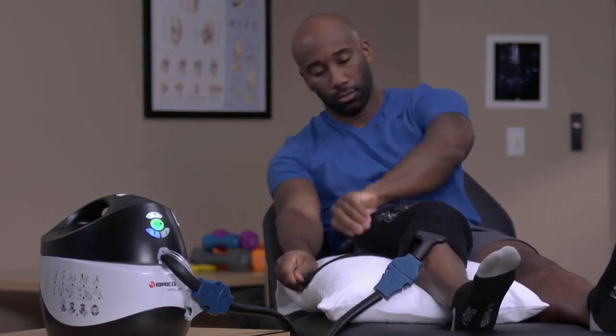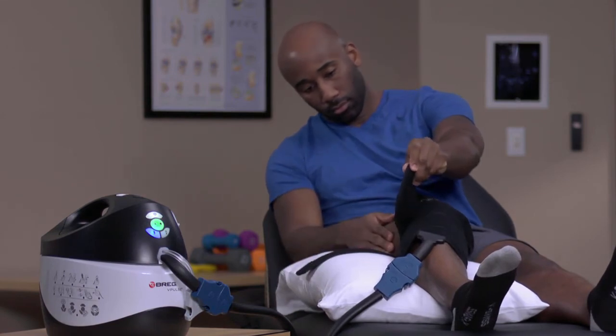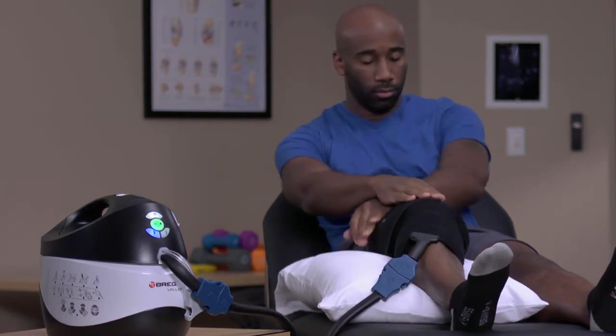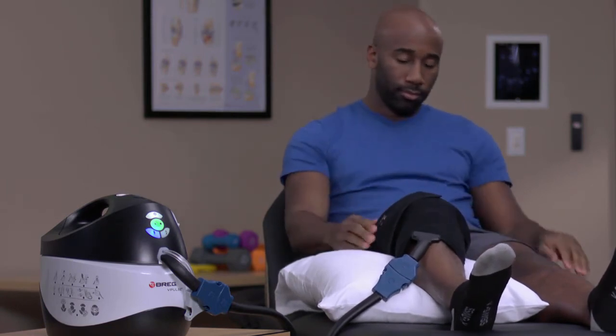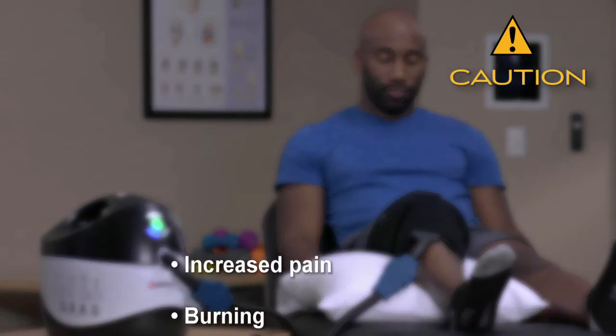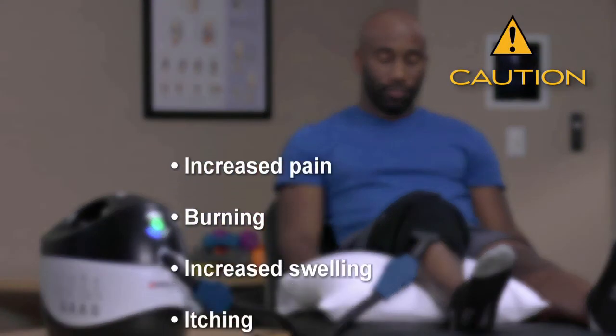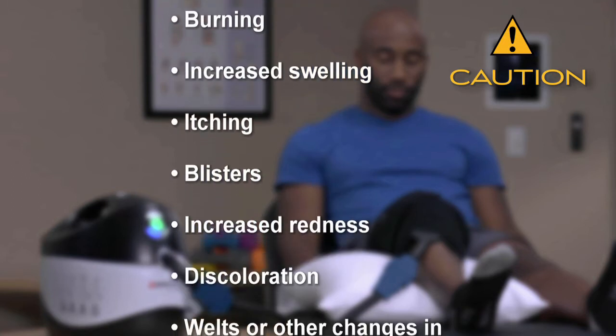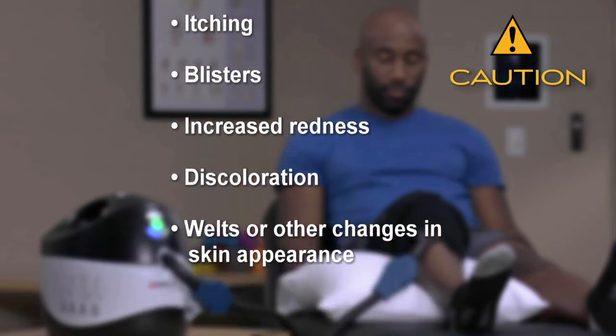When using this system, check the skin underneath where the pads are applied as instructed by your doctor. Discontinue use and contact your doctor if you experience any adverse reactions such as increased pain, burning, increased swelling, itching, blisters, increased redness, discoloration, welts, or other changes in skin appearance.